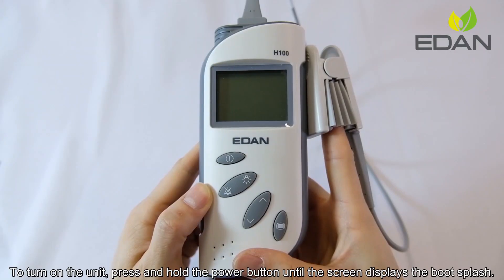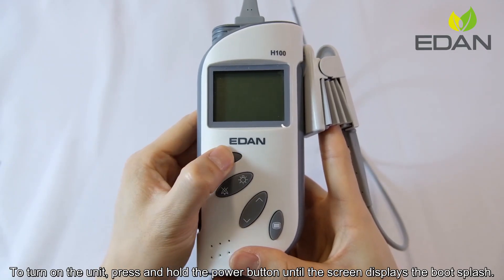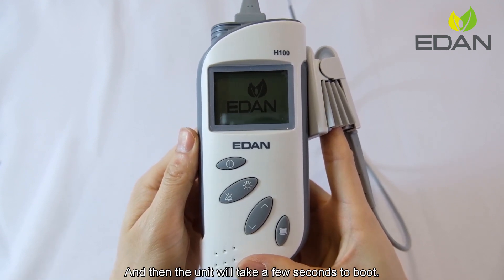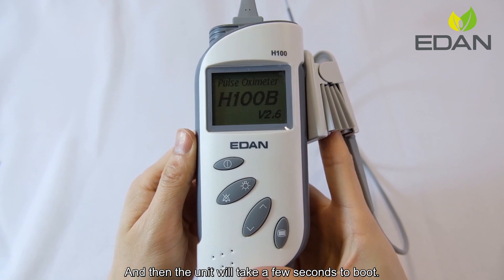To turn on the unit, press and hold the power button until the screen displays the boot splash, and then the unit will take a few seconds to boot.